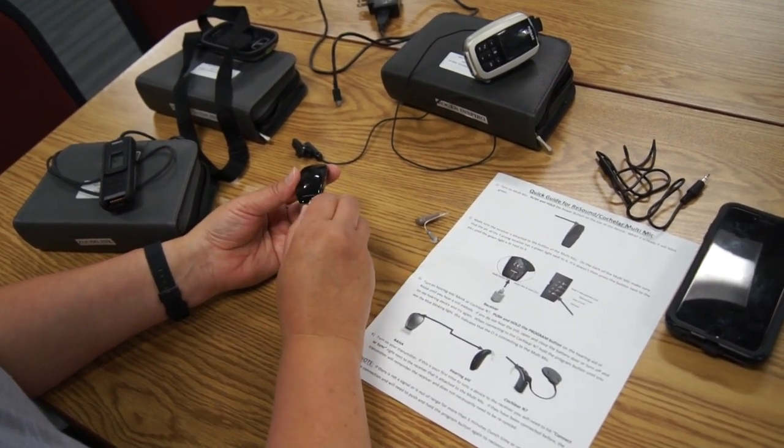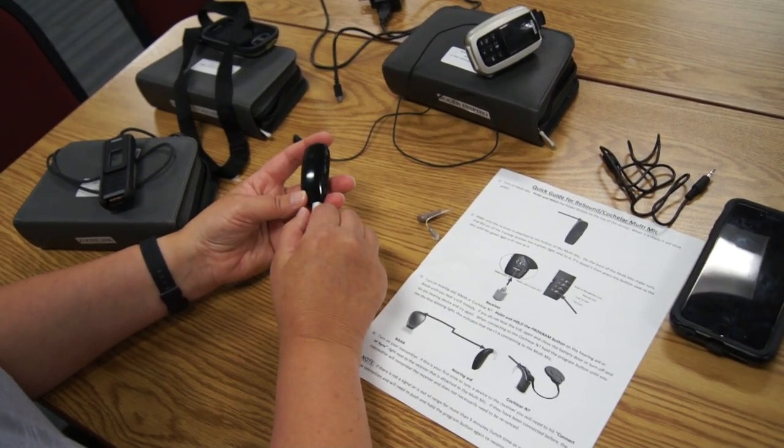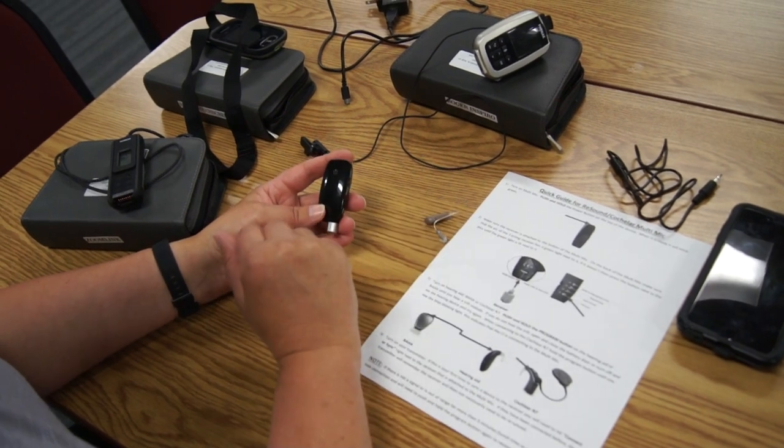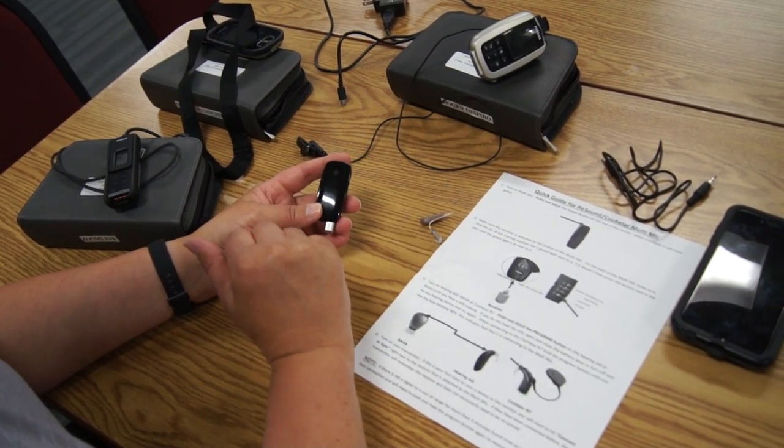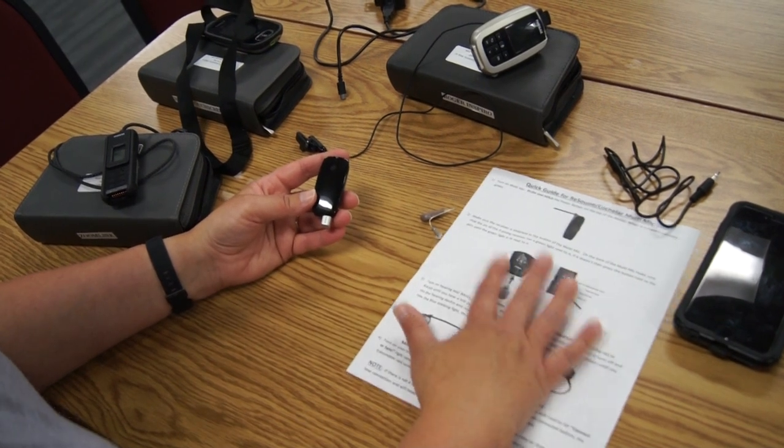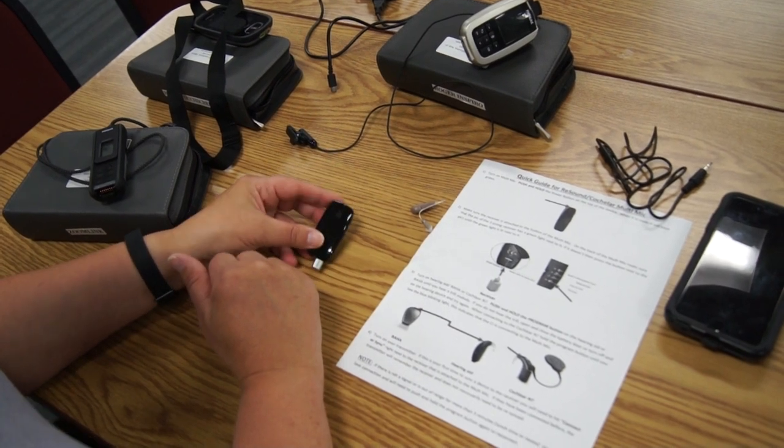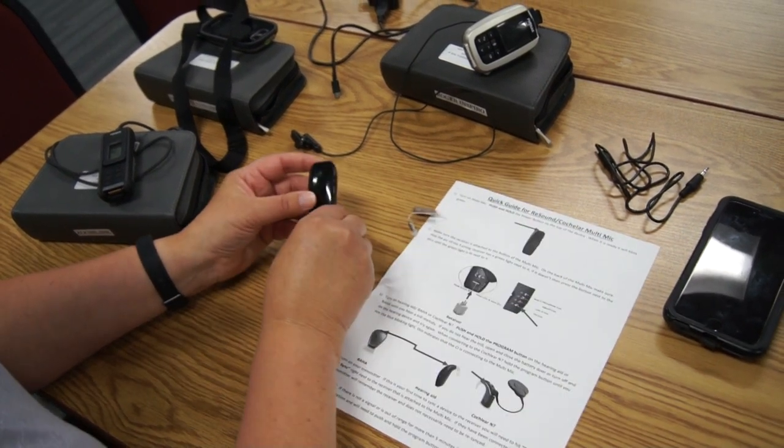If you have any questions about this device, I am more than happy to come out and do an individual training for you. Try to follow the directions here and see if that helps. If not, I'm more than happy to come out and help you. And once again, that is the cochlear multi mic.